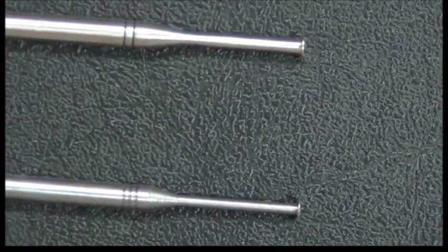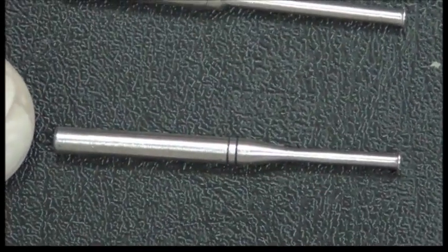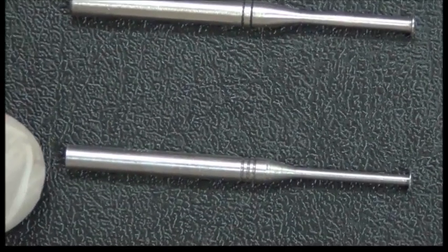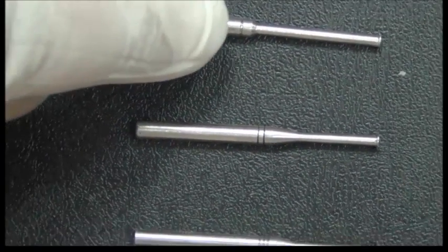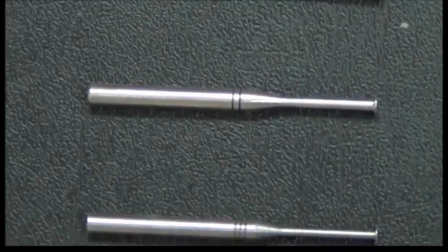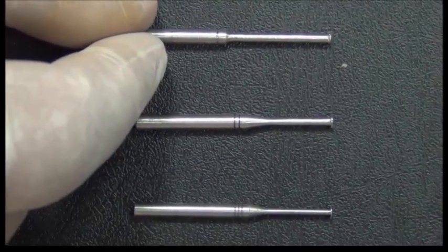These have specific measurements. This is 0.01 inch. This goes vertically inside 0.02 inch, and this goes vertically to the inside by 0.03 inch. To visually aid their identification, there are slots placed on the instrument. You can find 1 slot, 2 slots, 3 slots as a groove carved in the instrument, just to aid in quick identification of their measurements.